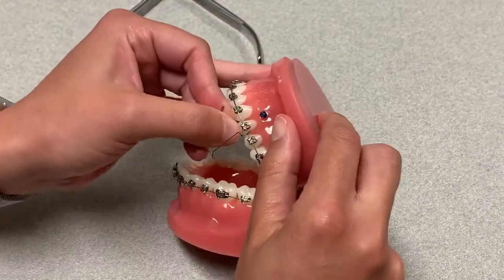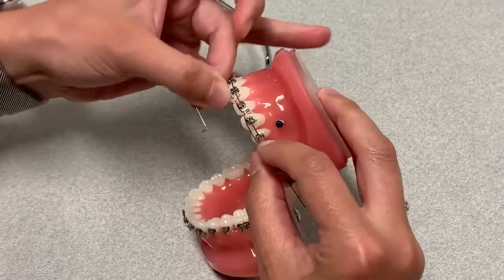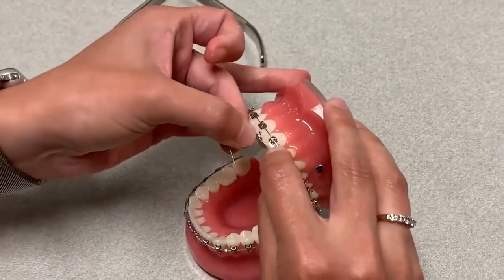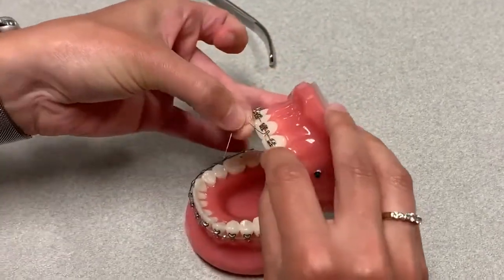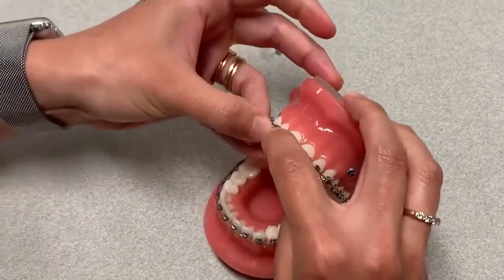So we're going to hook right here — it's going to skip two — and then you're just going to unwind it. And here we are with our central that has that little bit of a bend in there.